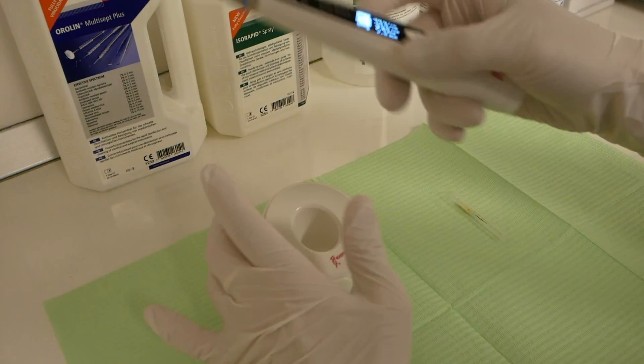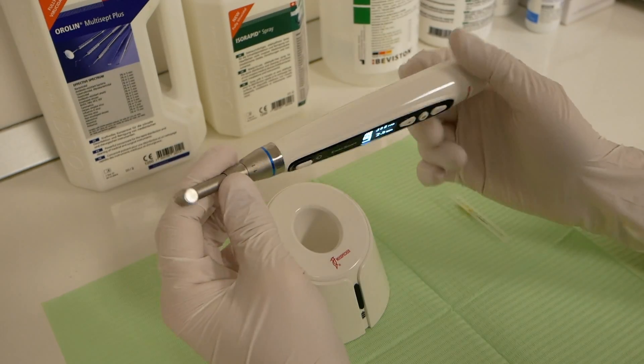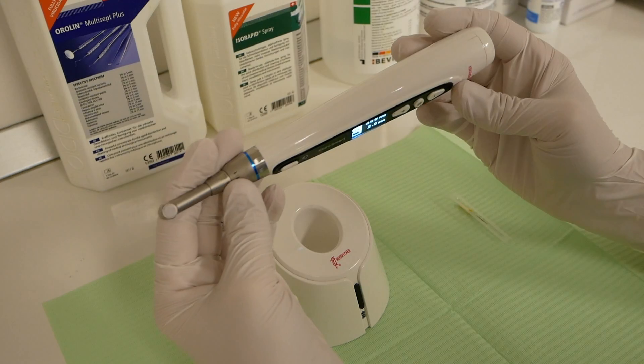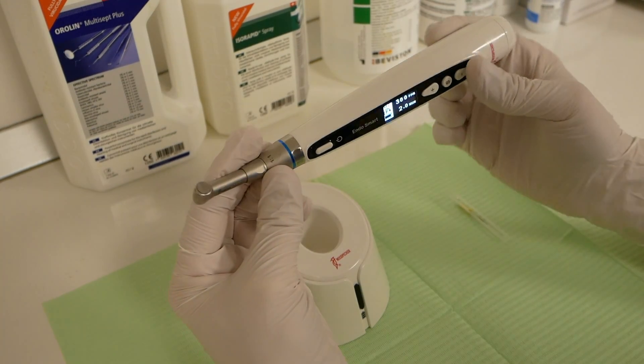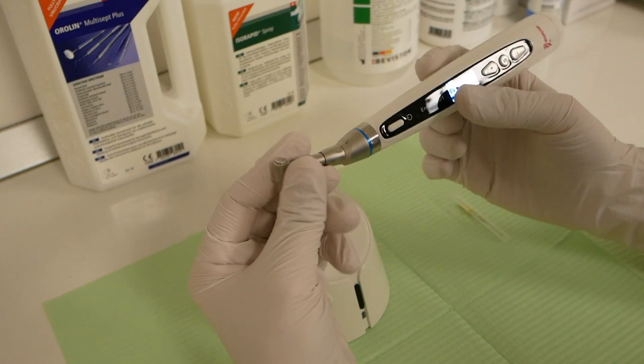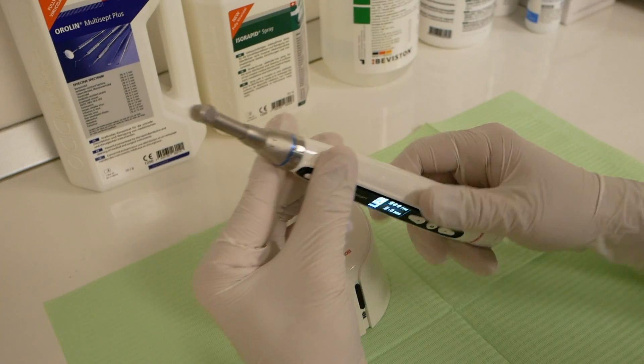I want to show you briefly the Woodpecker Endosmart Endodontic motor, which is a very simple, lightweight, effective, and pretty affordable endodontic motor.